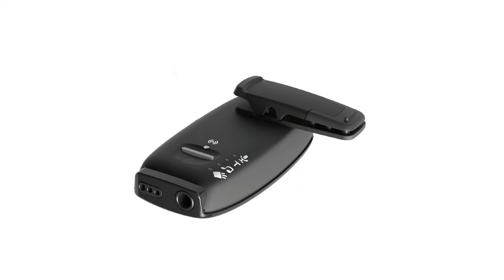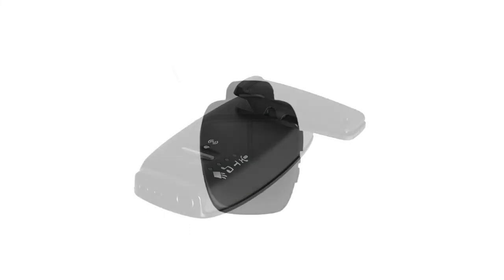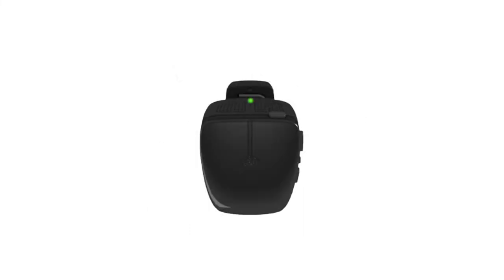For making adjustments to suit your listening experience, on the back is a large button that will allow you to easily switch between one of the four modes available. Pressing the button, a small light will appear beside one of the icons displaying your desired mode. You can also check the battery levels by pressing and holding the mode button until the LED light at the top flashes to indicate the levels.